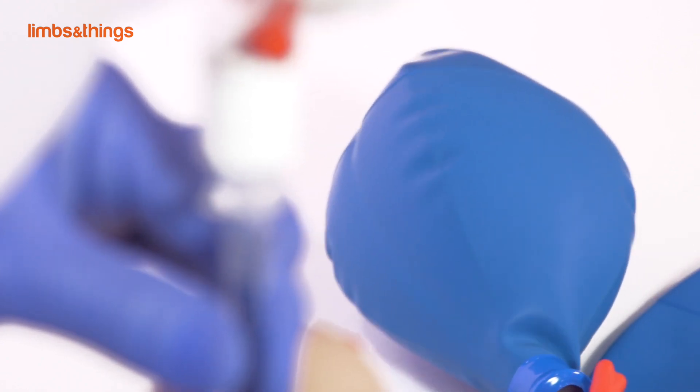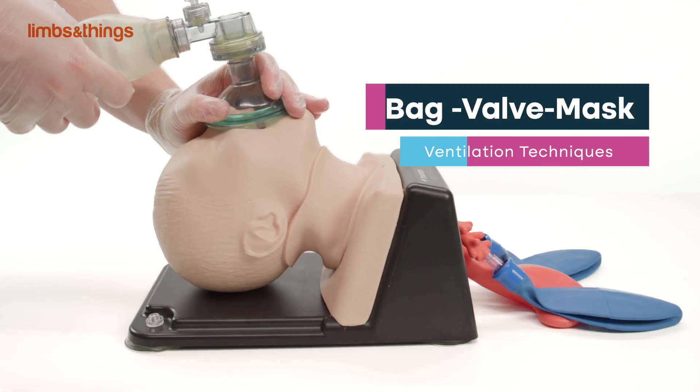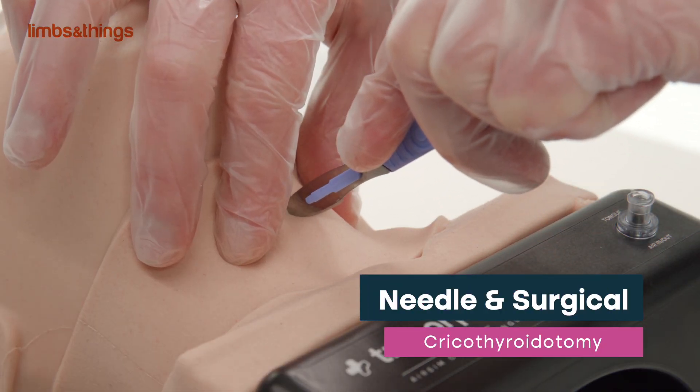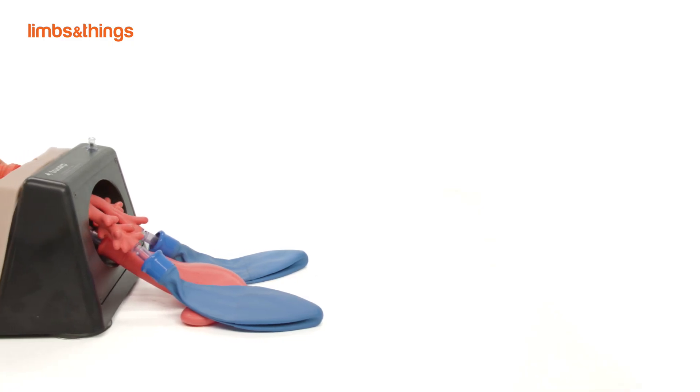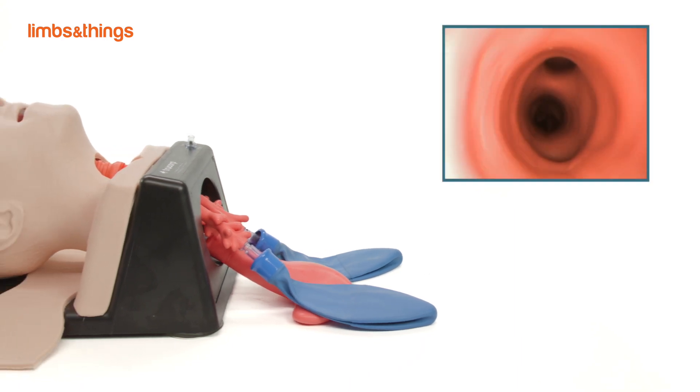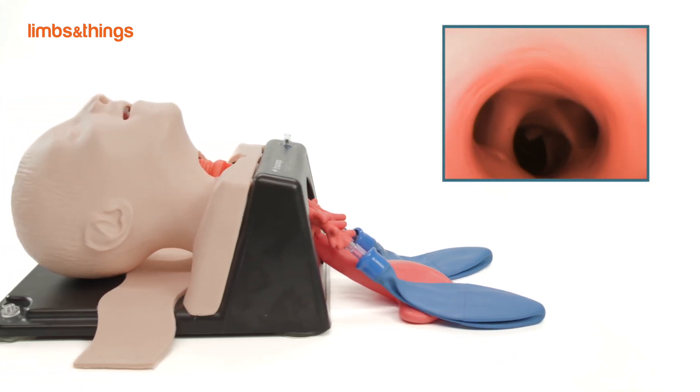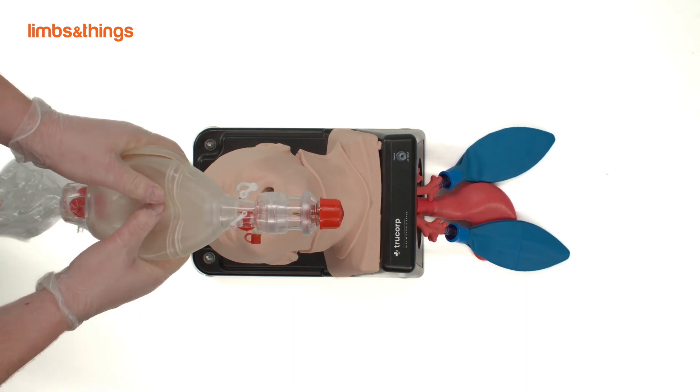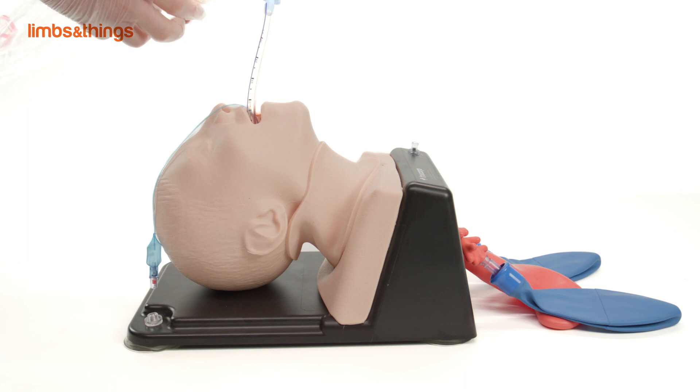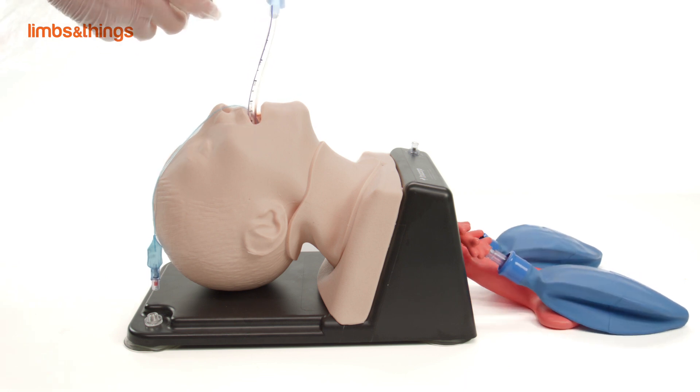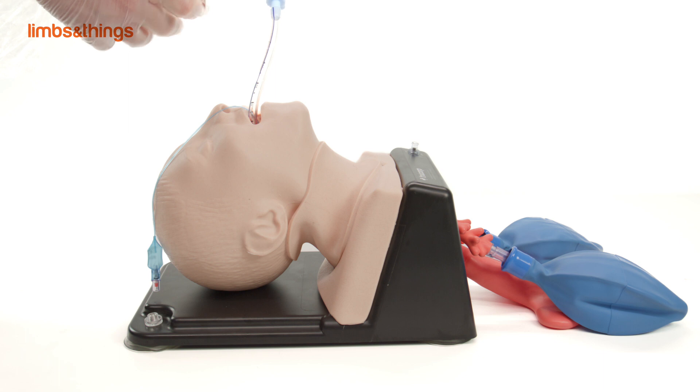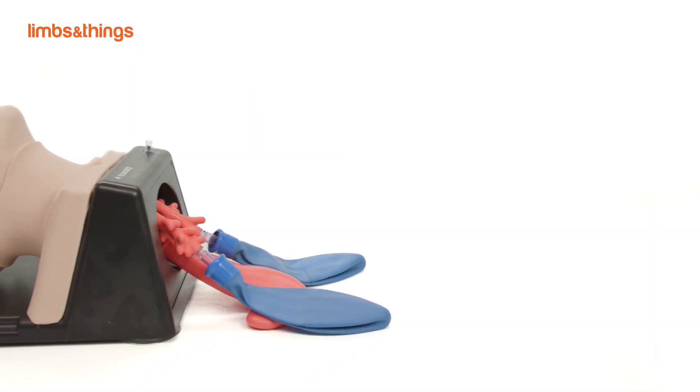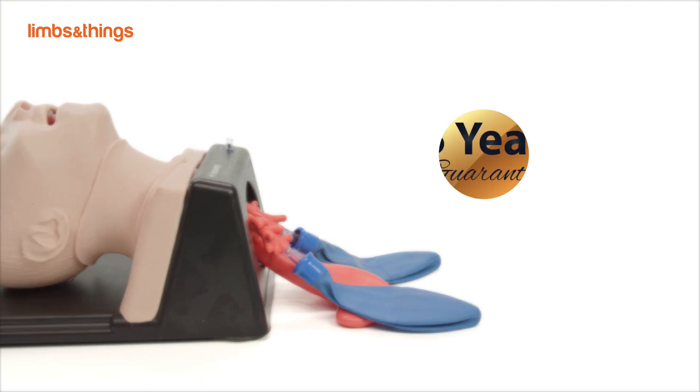Single lung isolation techniques, bag valve mask ventilation techniques, needle and surgical cricothyroidotomy, percutaneous tracheostomy, diagnostic bronchoscopy including awake fiber optic examination, lung isolation and suctioning techniques including bronchial blocker insertion, single and double endobronchial tubes, and specialized stents. This model is part of the AirSim X range, which provides realistic and durable training.